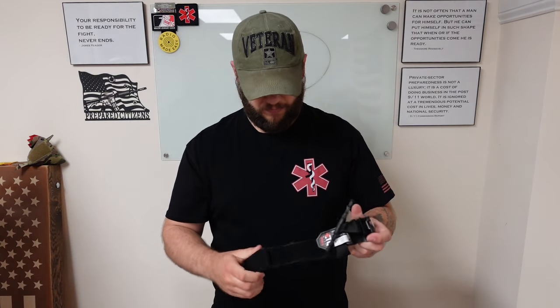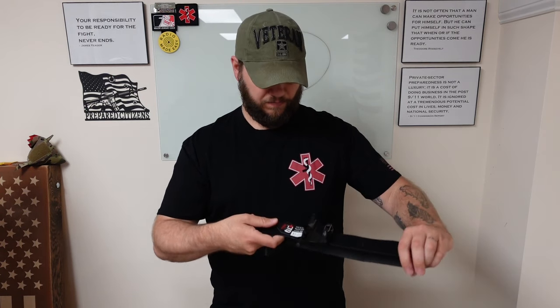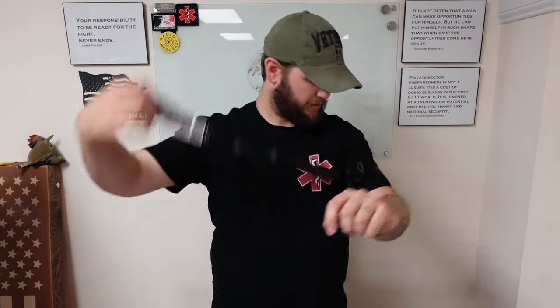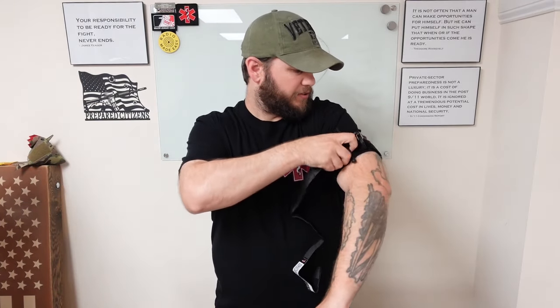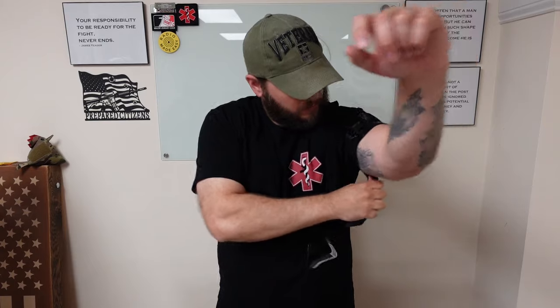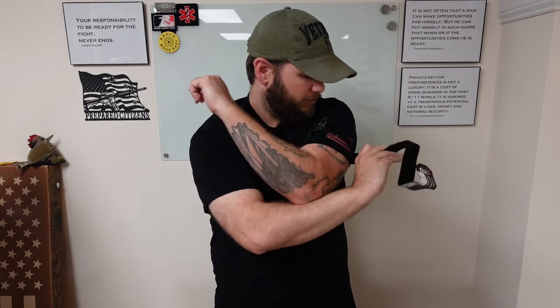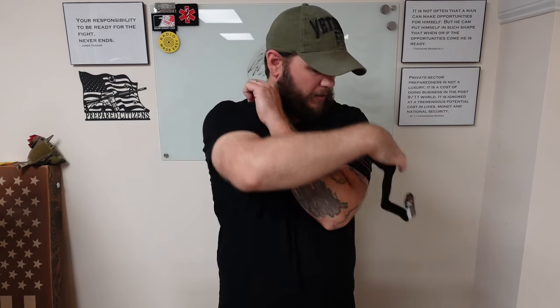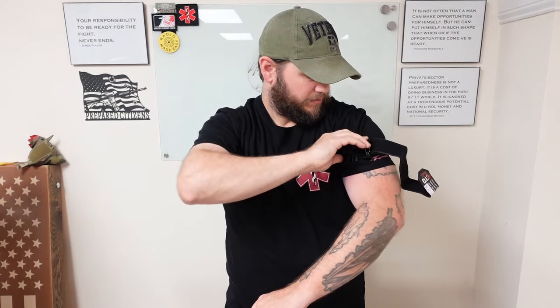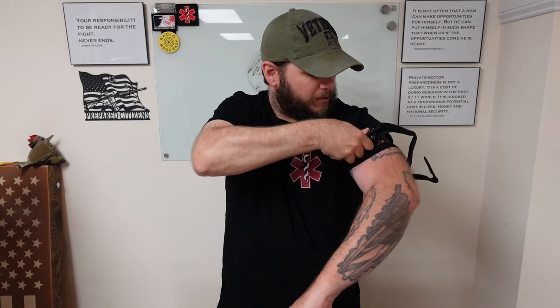It's pretty straightforward. This is my first time doing this with this one — you guys are watching me for the first time. Throw this baby on, get it up high, make sure it's on really good. Let's crank it on down. That went pretty good. Y'all hear that? Woo — it feels tight.